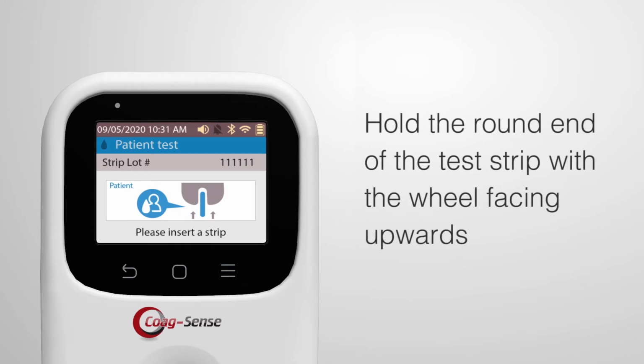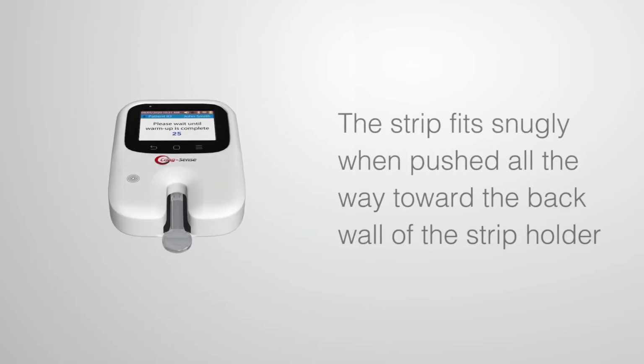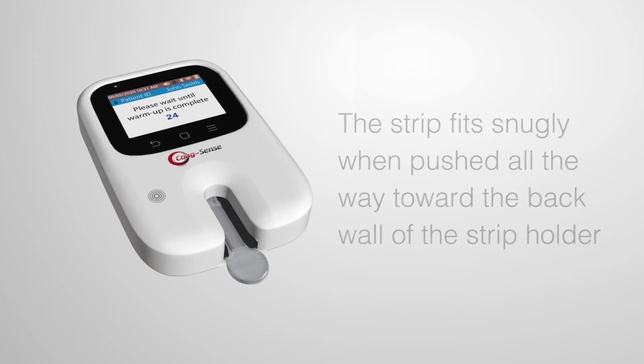Hold the round end of the test strip with the wheel facing upwards. Gently push the strip completely into the meter. The strip fits snugly when pushed all the way toward the back wall of the strip holder.